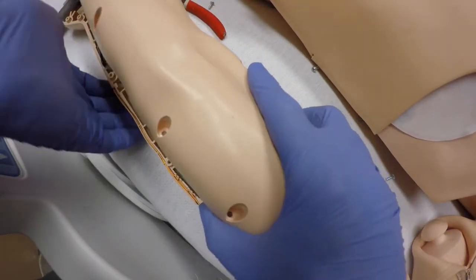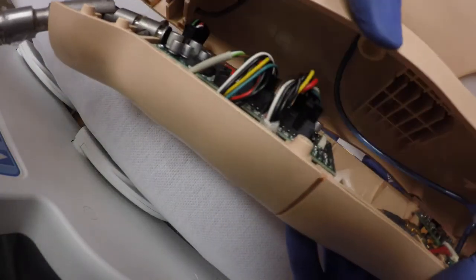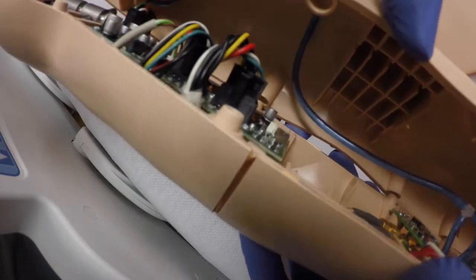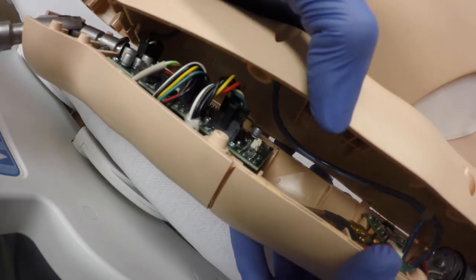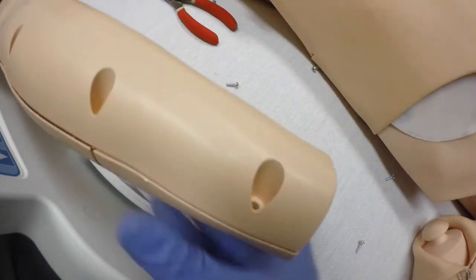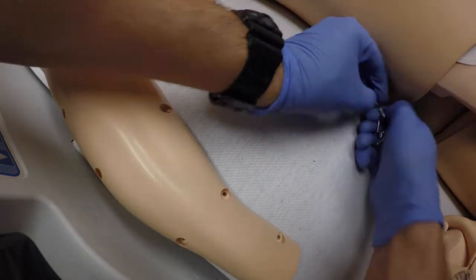That's just going to lay loose in there. You want to make sure the hose doesn't get clamped in between the plastic. I'm going to double check to make sure that's actually up inside of the upper part of the arm. I also want to make sure that I put my arm skin back in the holder here before I start putting screws in, because that's what holds the skin on — I've done that a few times.